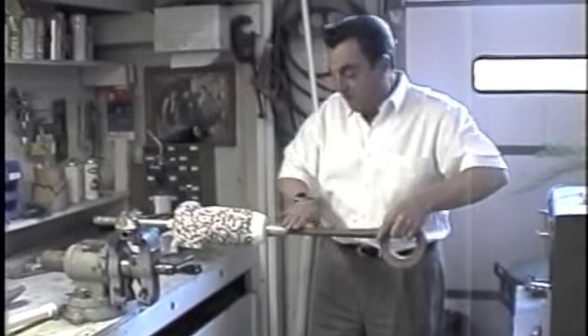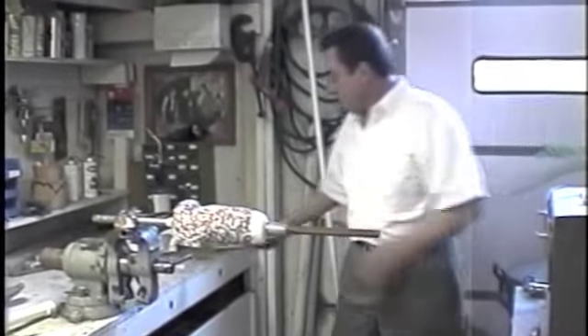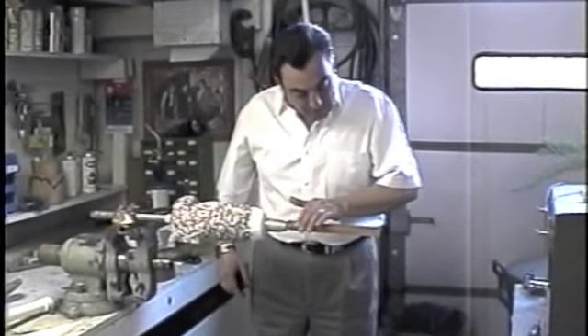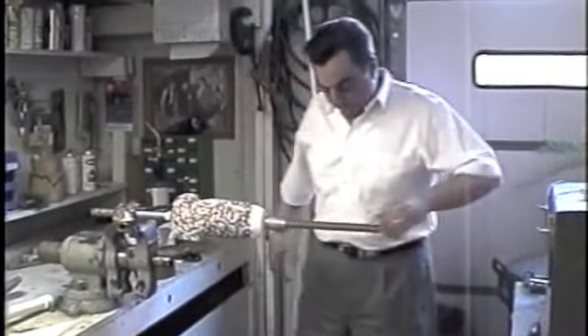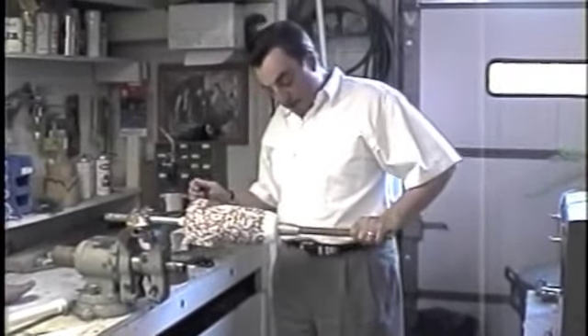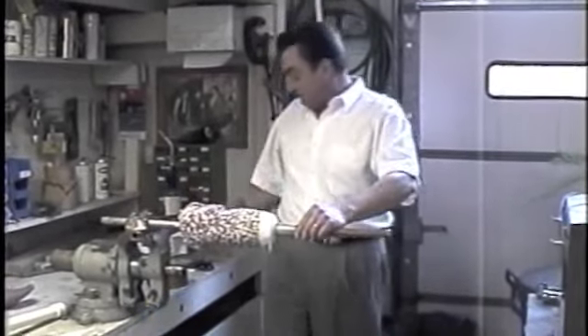What I'm doing is laying the layer of tape down smoothly, snipping it off, and then carefully massaging it in so that it doesn't wrinkle. If you have wrinkles in the tape it's going to affect the dimension of the pylon. That's three layers so far — we need to go to six layers.